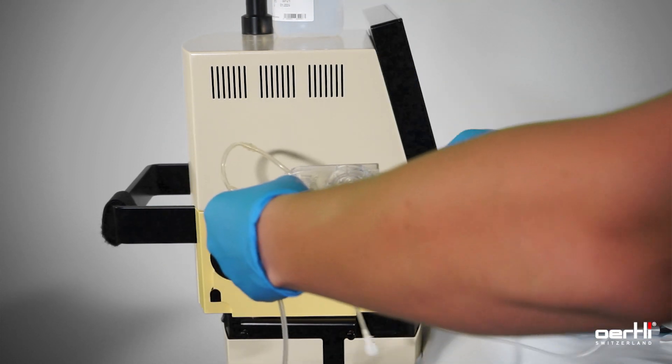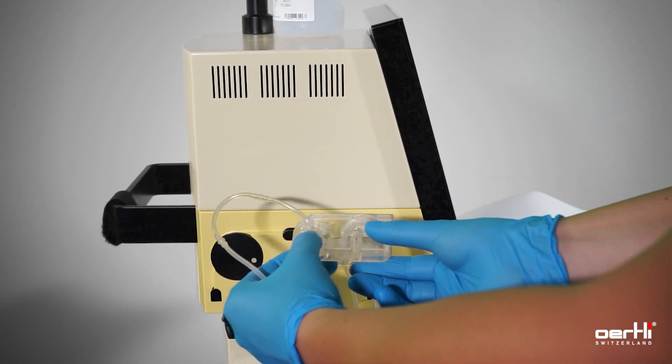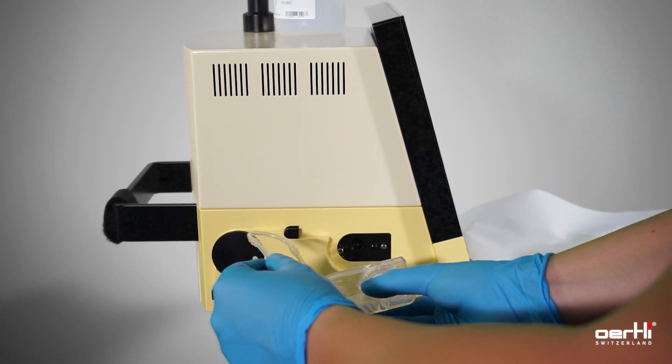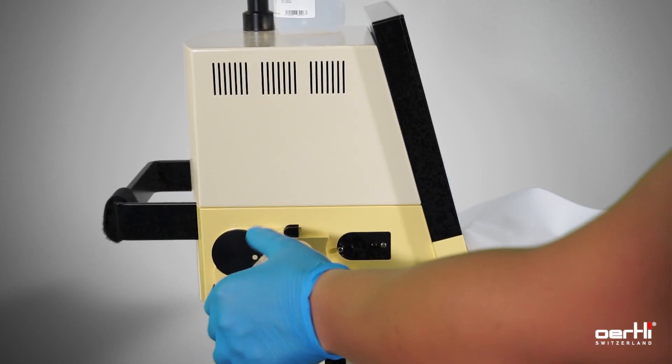Ensure that the tubing here is freely maneuverable. Make like a U-shape turn with the tube.